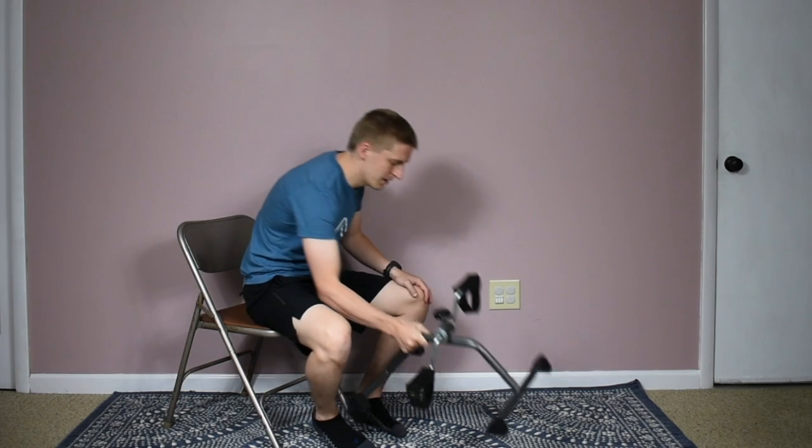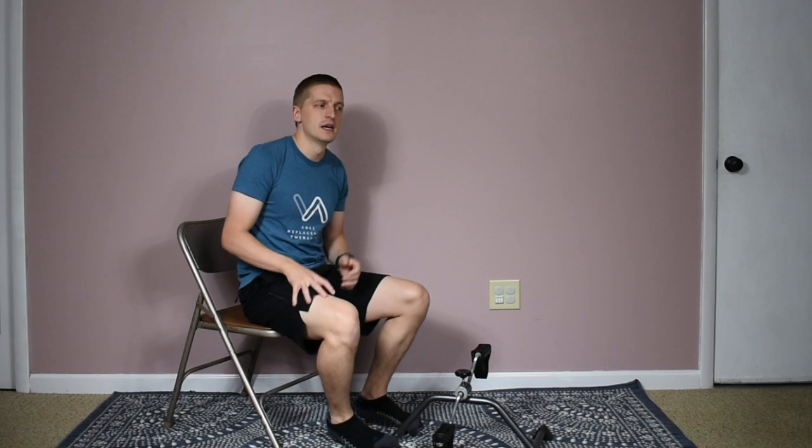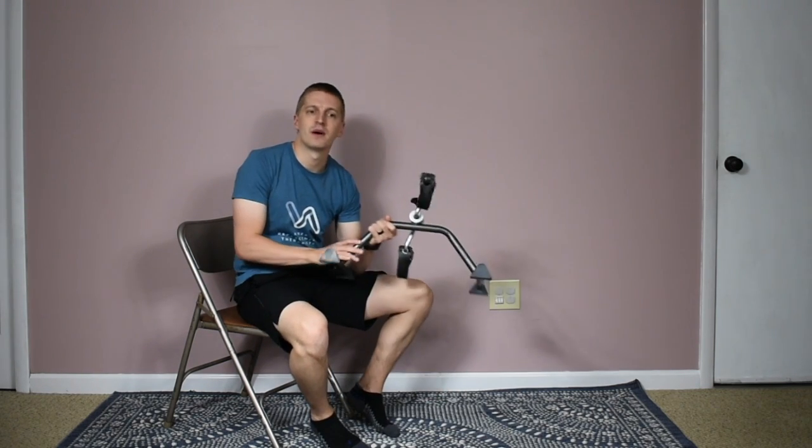There's actually some research that's come out recently showing that individuals who use this piece of equipment in conjunction with the rest of their rehab and recovery tend to see early improvements and a slightly faster recovery. So there's definitely good efficacy and potential benefits, and it's a nice affordable piece of equipment — probably around twenty to thirty dollars to order online. I hope this video gave you some good tips and advice for using this equipment and why you might want to use it.